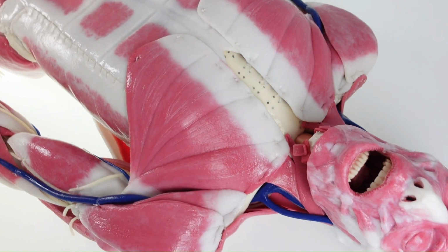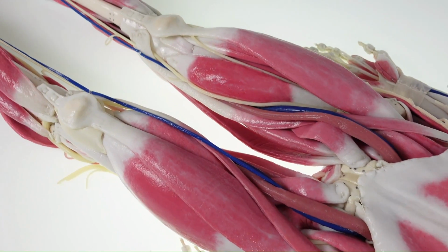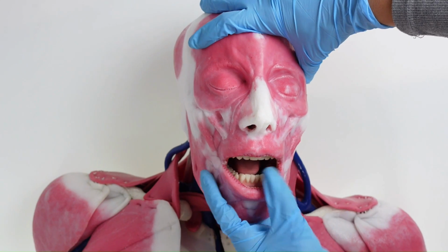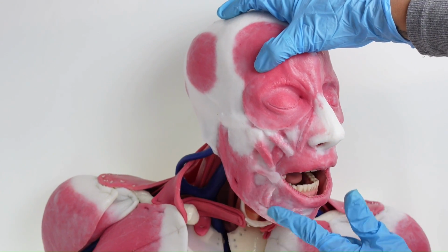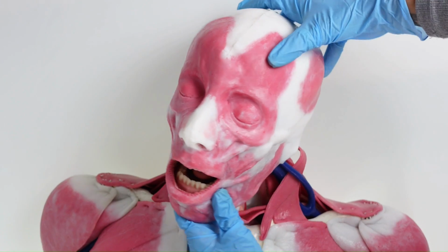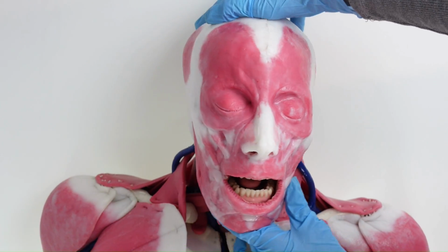The SynDaver G2 anatomy model in Syn tissue. With full airway access, this model can be easily intubated. Muscles on the face are the only muscles not pre-dissected out for you. SynDaver models have about 60% range of motion as a live human. Resistance will be met.